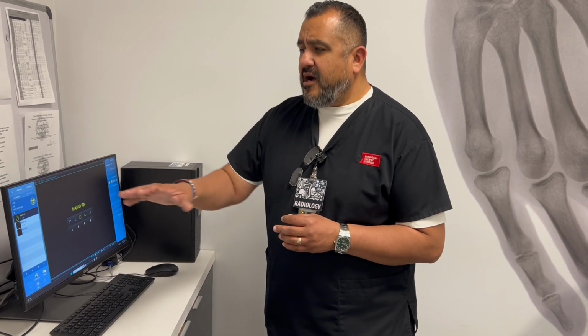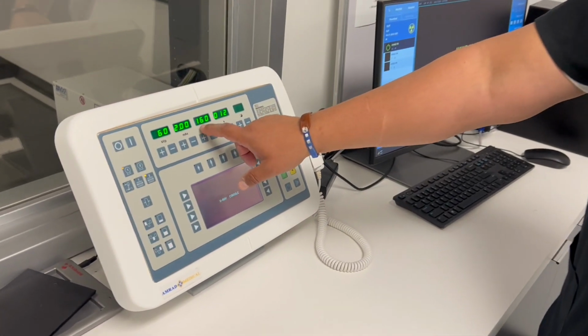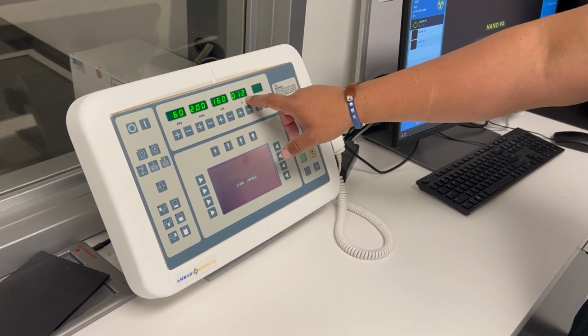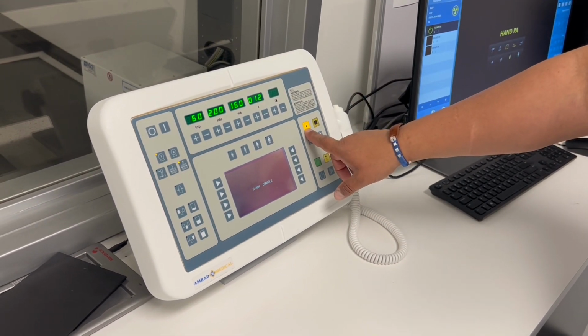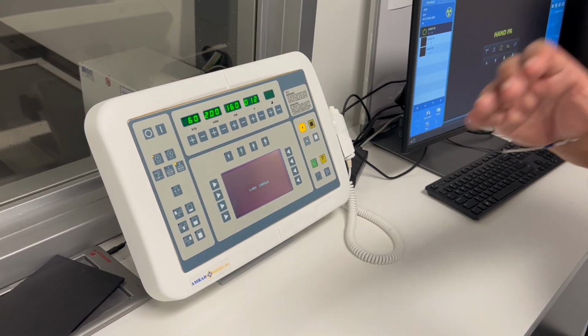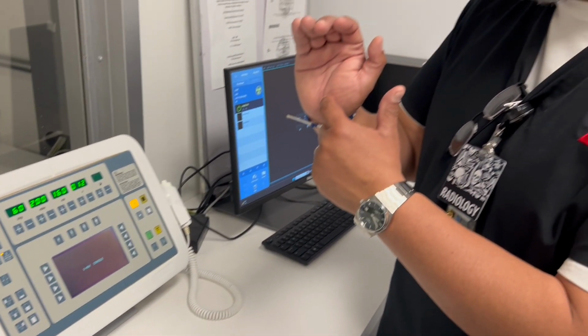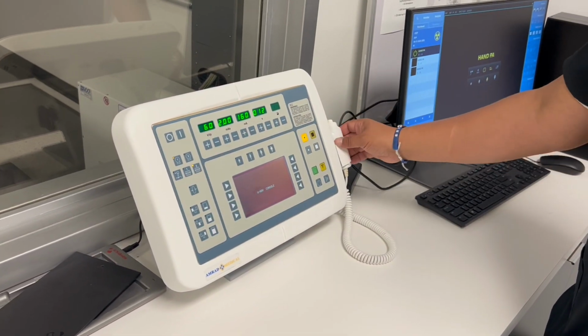And here's our technique selection. Right now I have 160 mA times 0.012 second. On this system you can see the small focal spot size, so there's only a certain amount of heat that will be impressed on the filament. Remember, inside the cathode there are 2 filaments. We're using the small one right now, and we're going to use 60 kV. So I'm going to go ahead and make an exposure here.